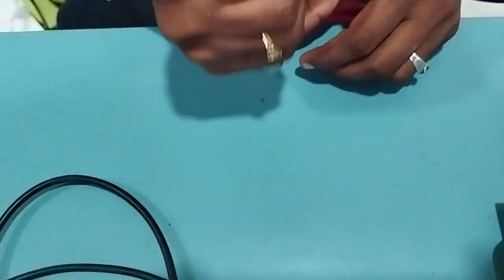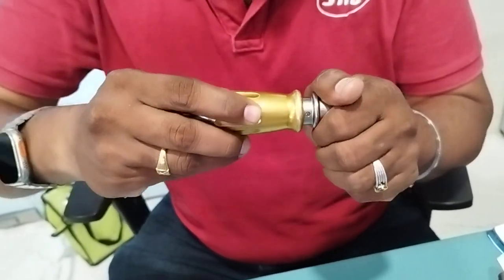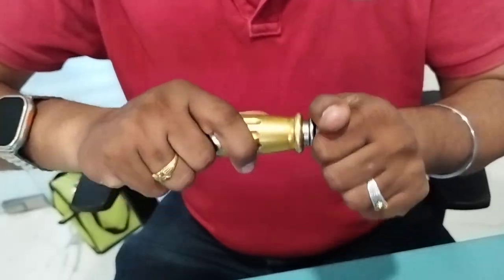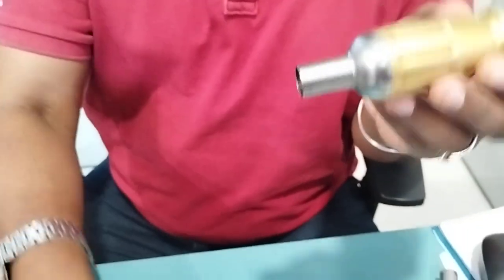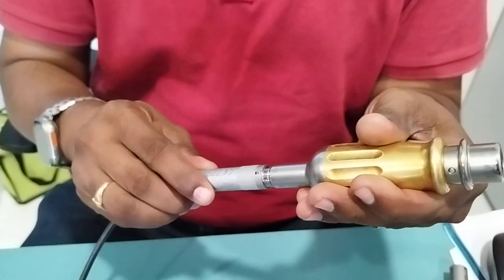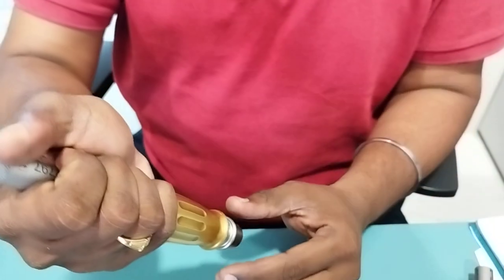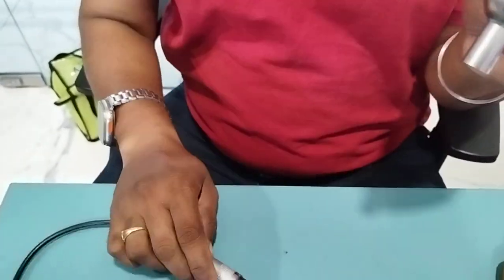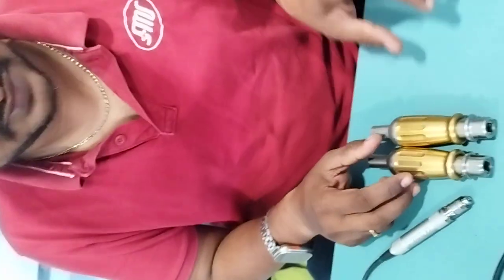The reason to apply a load is: when you connect the craniotomy cutter and press it against the skull, you are pressing this metal into the inside gears. At that moment, if it is not rotating under load, this attachment is also damaged. You should not connect it to the motor and run it, because after connecting, while drilling, it will automatically jam and give an error on the console. So don't use this attachment. I just wanted to share this information.